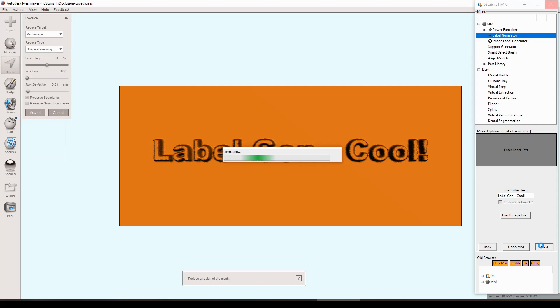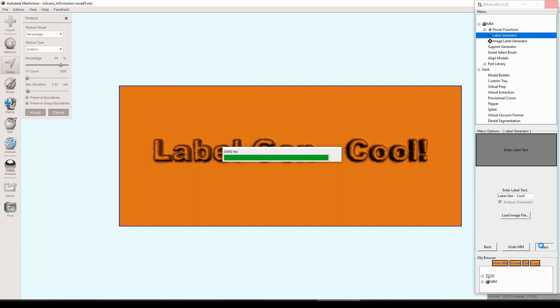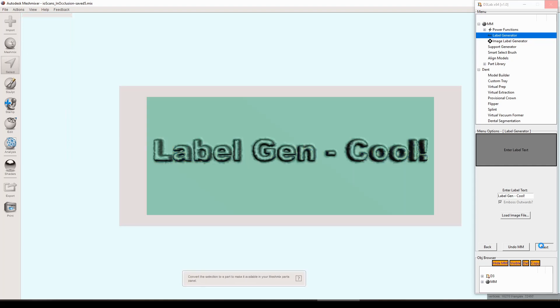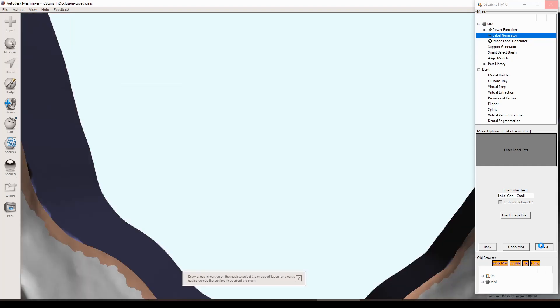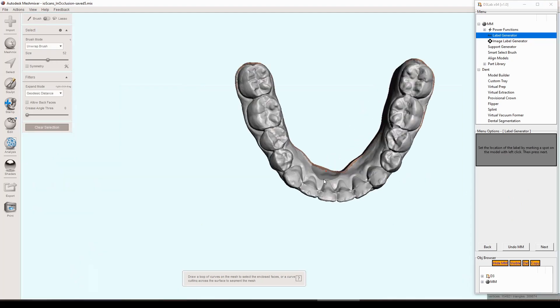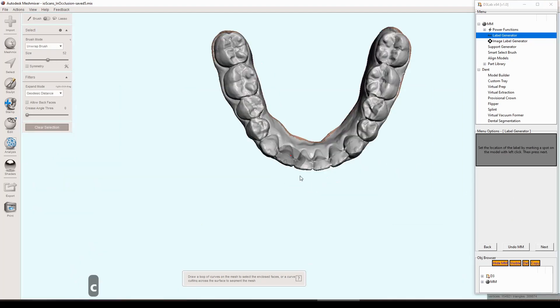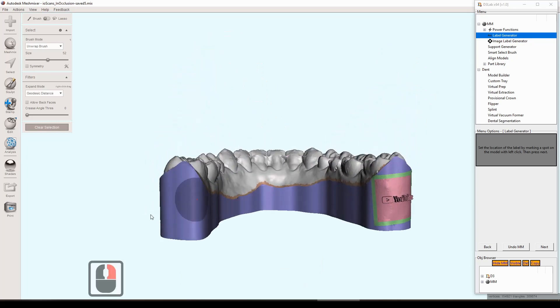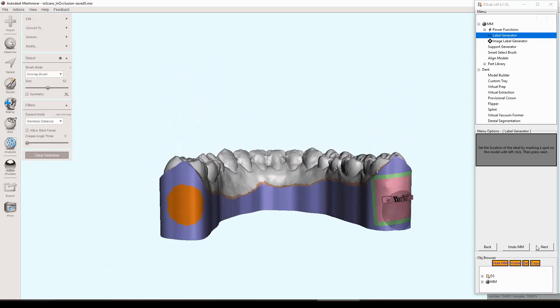I think in future updates to this particular tool, the things that would be easiest to do would be add fonts and bold, italic, things like that. All that's built into the programming language, just a matter of kind of listing those options and applying them. So that could be a future update if people are interested. You just kind of got to let me know in the comments if that's something you really want.